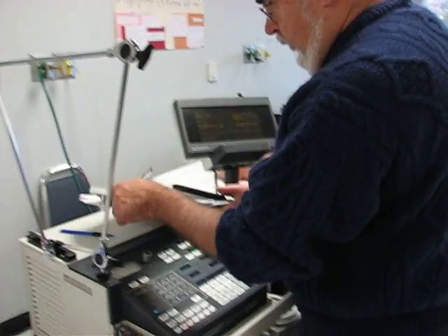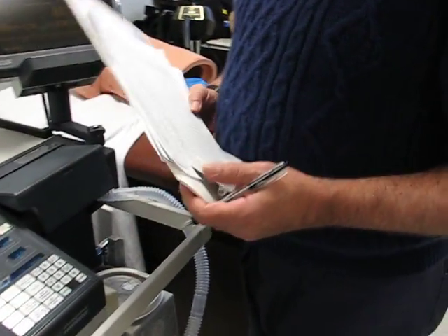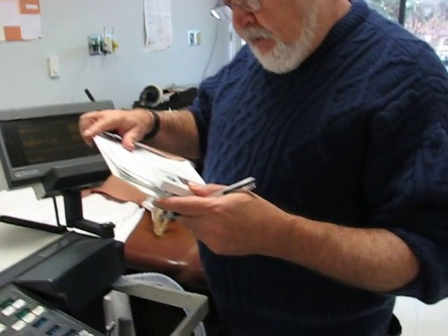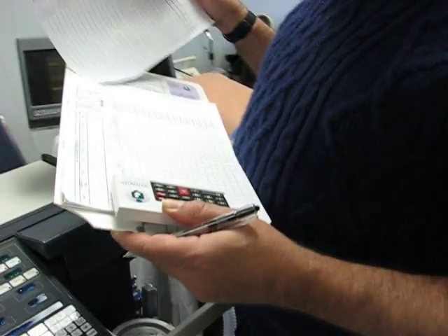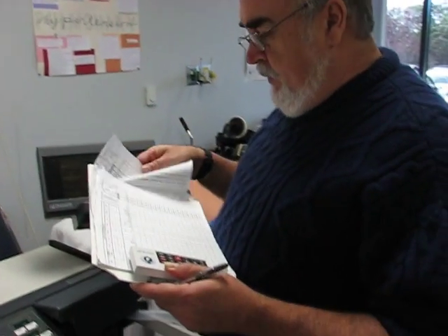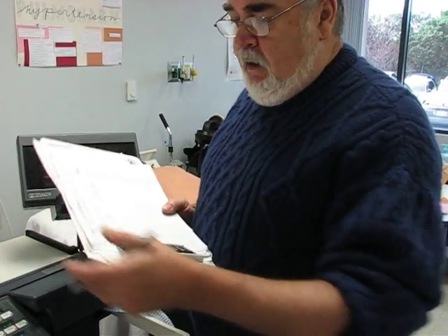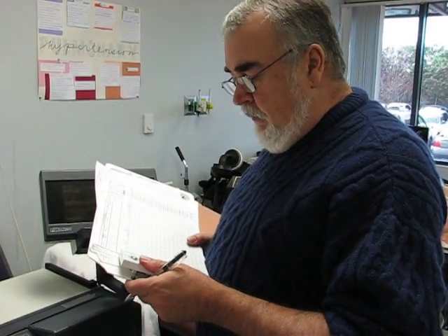Now that I've got all my settings in and the patient is ventilating, and I see that there's nothing alarming, I can do my ventilator check. In real life in the hospital, you'll be doing these either every 2 hours or every 4 hours, depending on the policy of the hospital you work at. And when you do them, you'll be doing them in the patient's room, not with the chart.